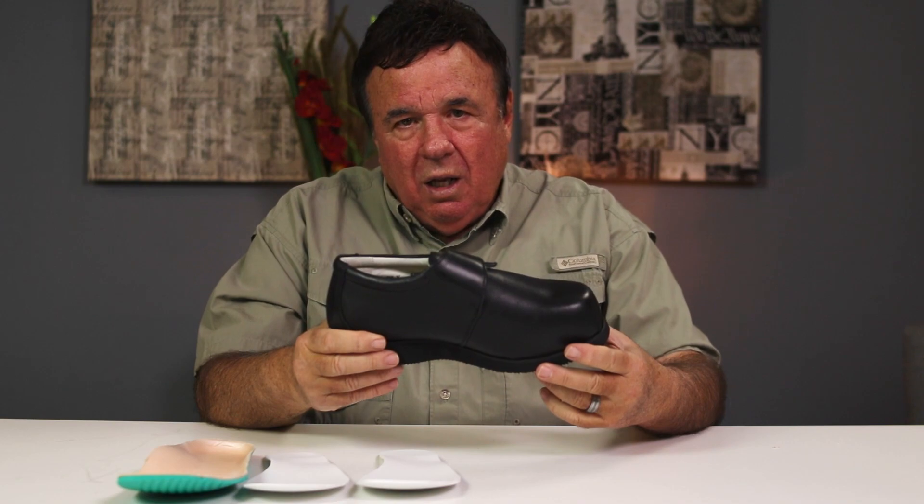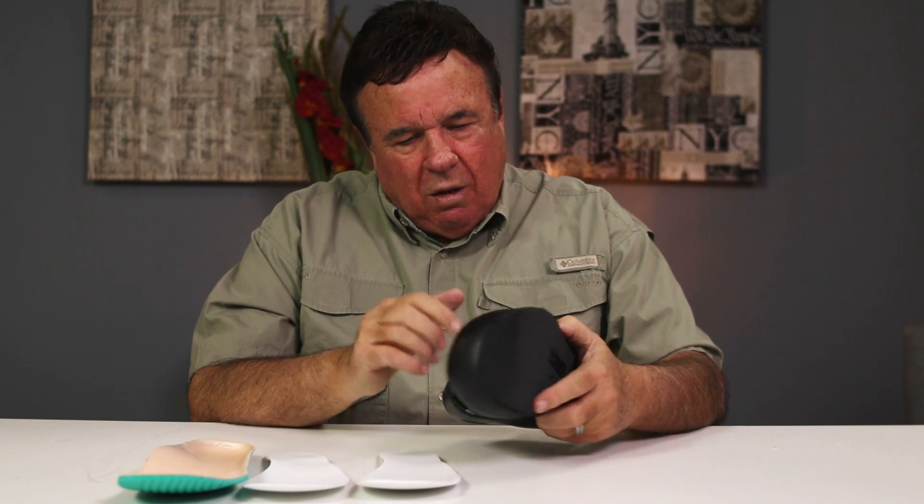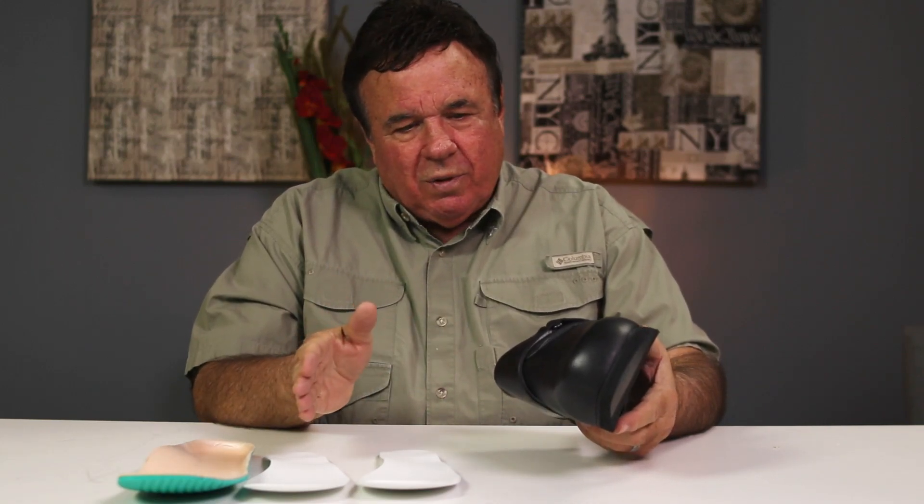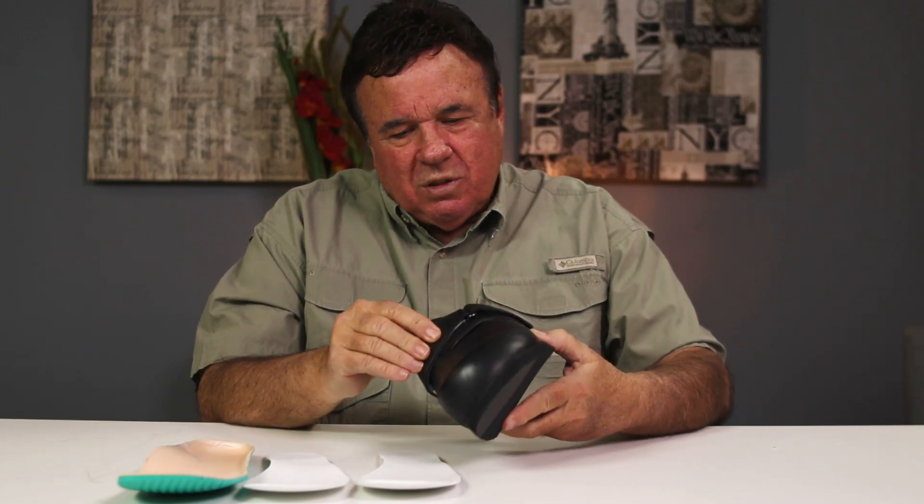We go to 7Es in this particular shoe, 5Es — we can make this in a 9E, 10E, or 14E as well, and that'll be in the special order section. All leather, all Napa leather, all leather lined, so you have the breathability and the flexibility with that. Leather is only found in better shoes all over the country, and everybody who knows the shoe business knows that.